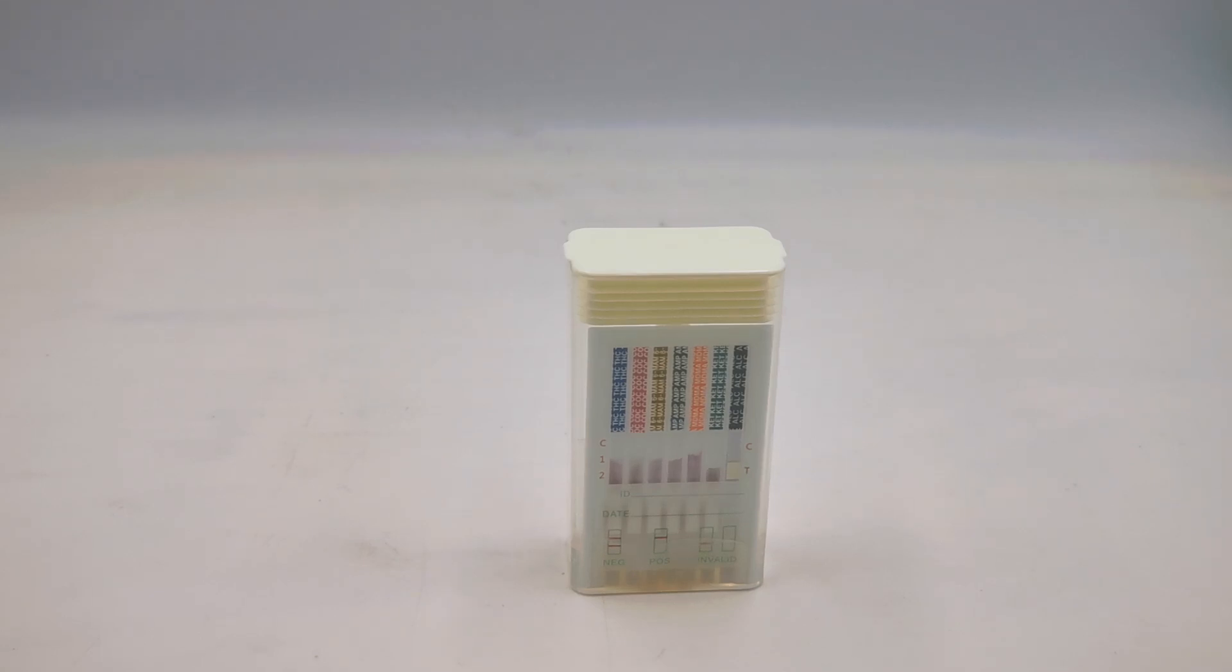What I'm going to do now is stop this video and talk you through the results showing on this swab cube at five minutes.